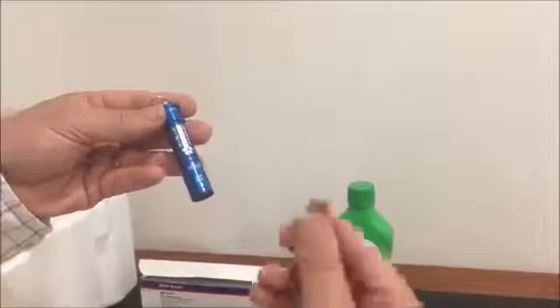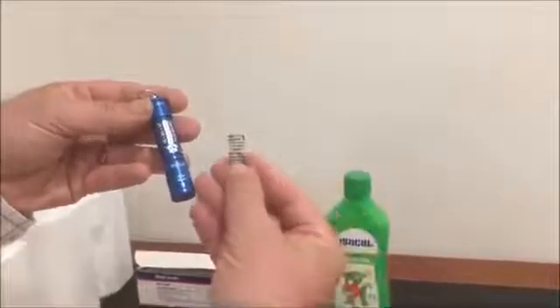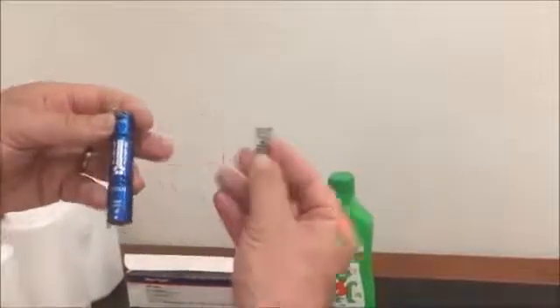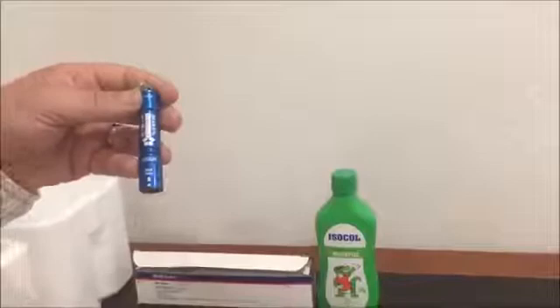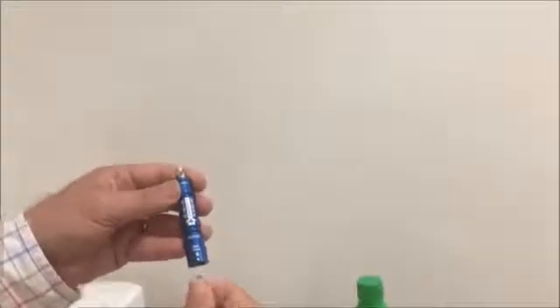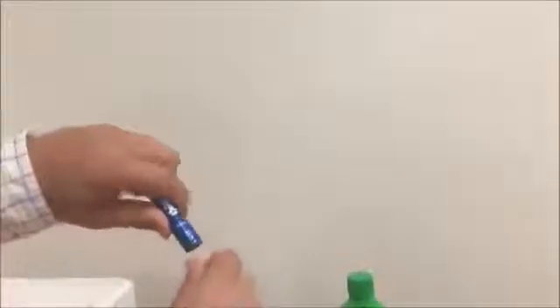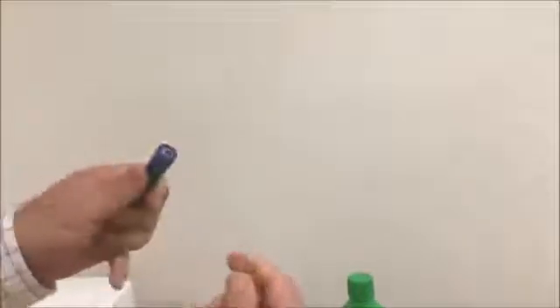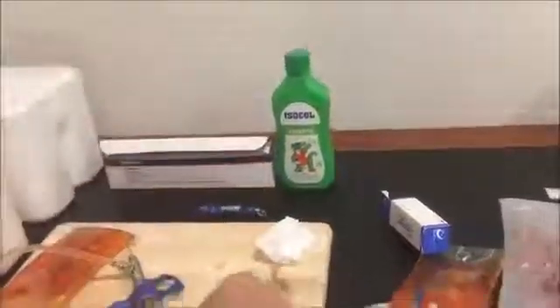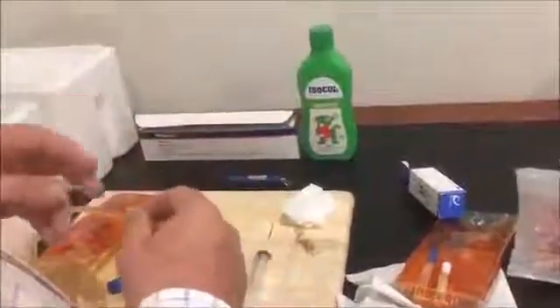Be careful opening the vials as it can produce small glass fragments at the top — keep your thumb out of the way to avoid cuts. Alternatively, you can use an ampoule breaker: place the ampoule into the breaker and it can be broken safely, with the top ejected. Glass and needles at the end should be put into a sharps container and disposed of properly.